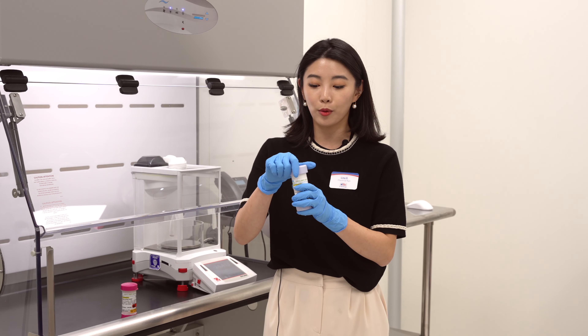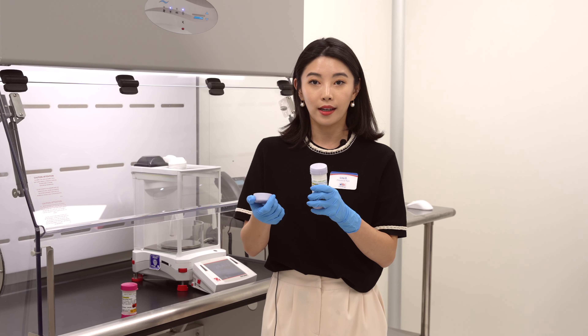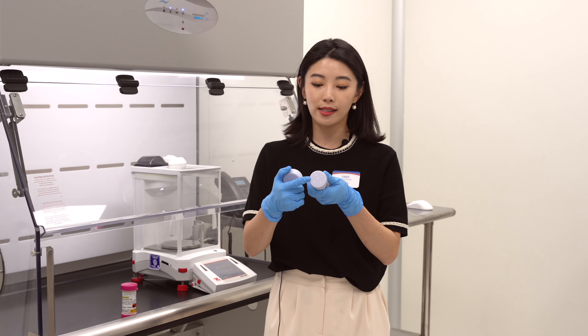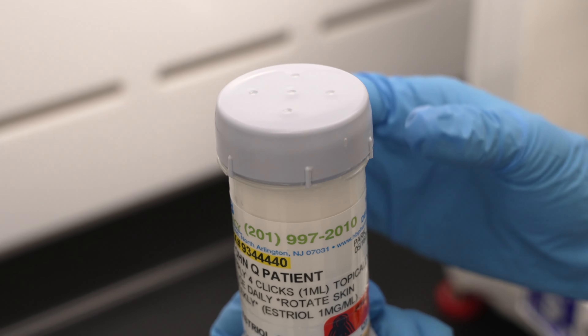What I'm going to do is open the cap by twisting it. Then you'll see a device with four holes, or actually five holes, or one hole, depending on your device.